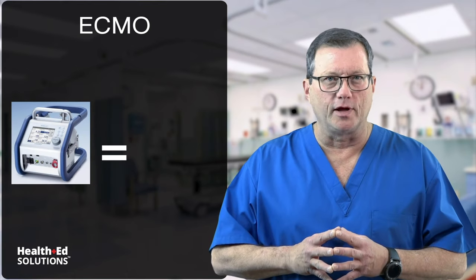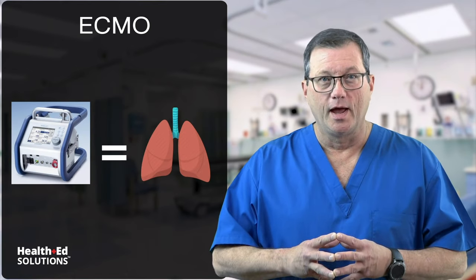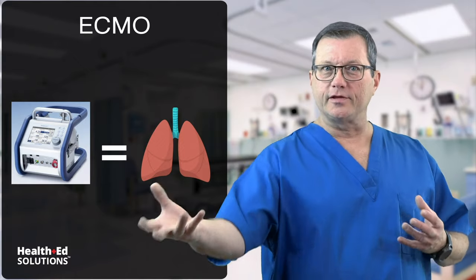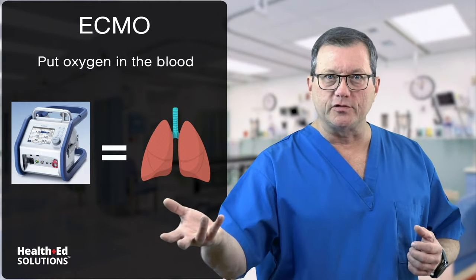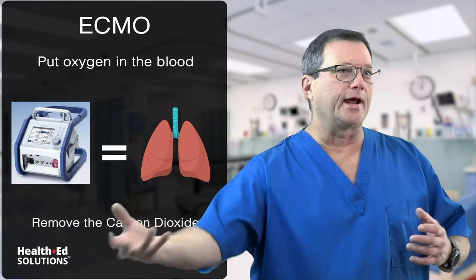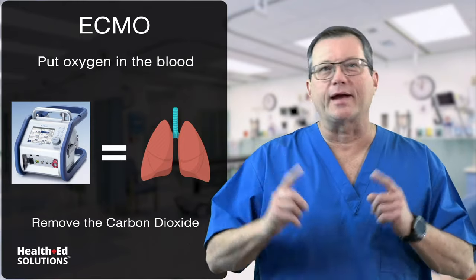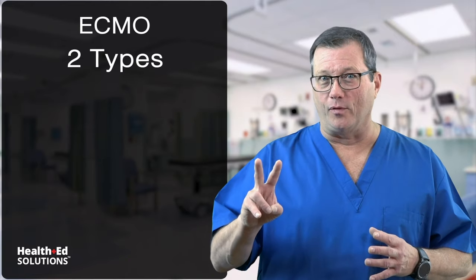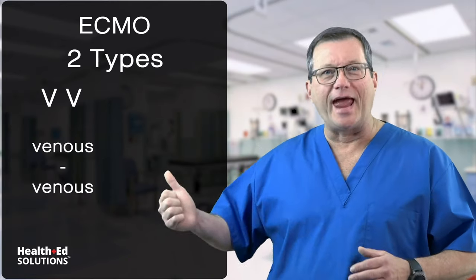When you look at an ECMO machine, what you're really looking at is a pair of lungs — that's what the ECMO machine does. I could take blood from a human, send it to this ECMO machine, the ECMO machine will put oxygen in that blood, it will remove the CO2, and I can return that oxygenated, clean blood back to the body.